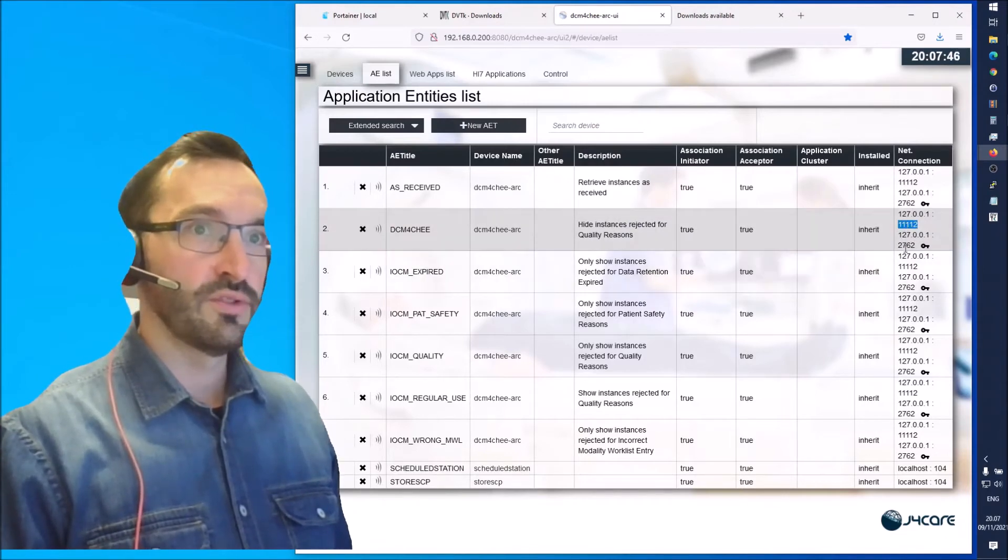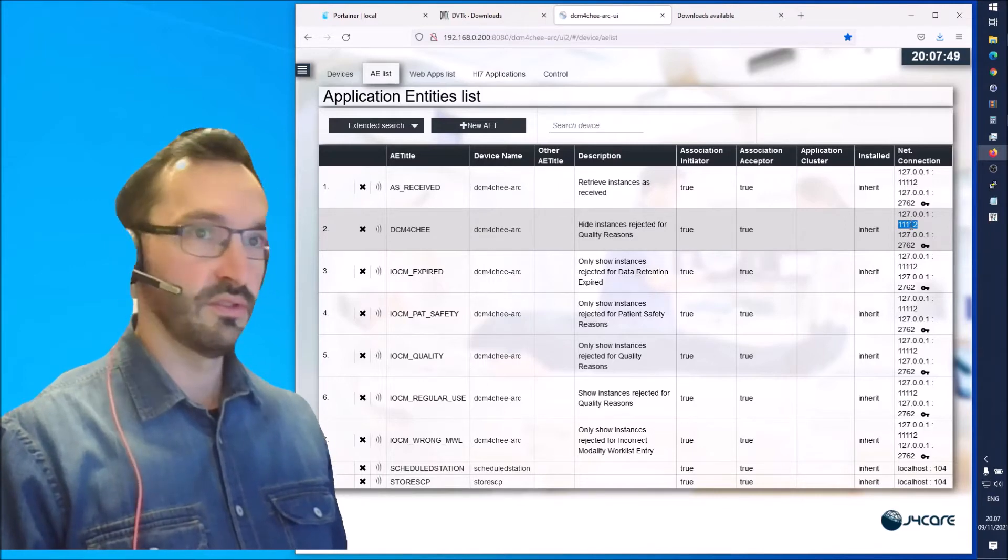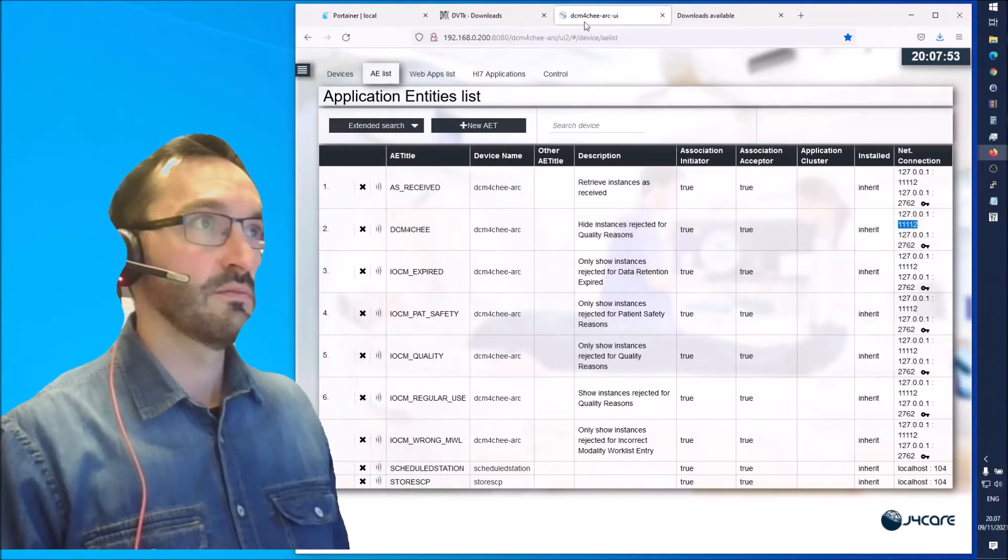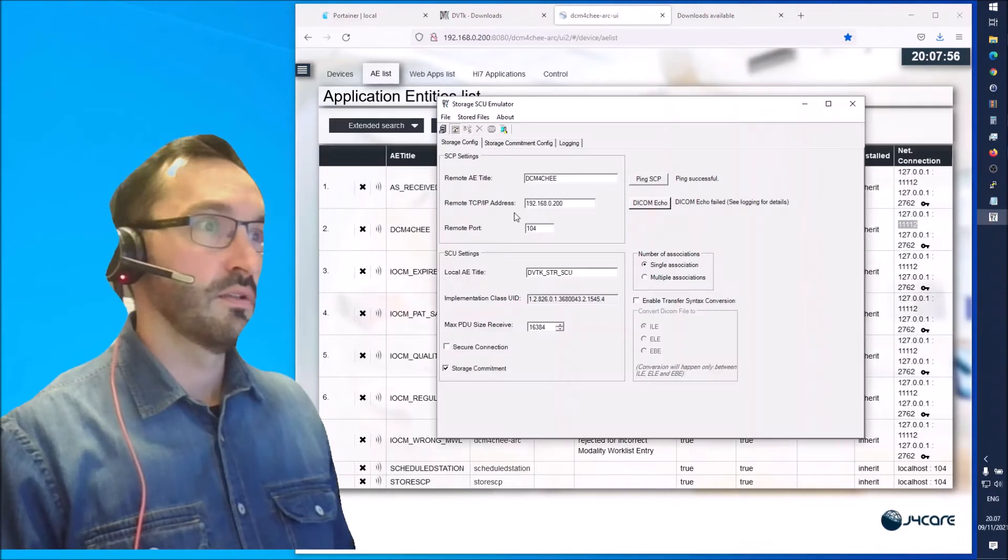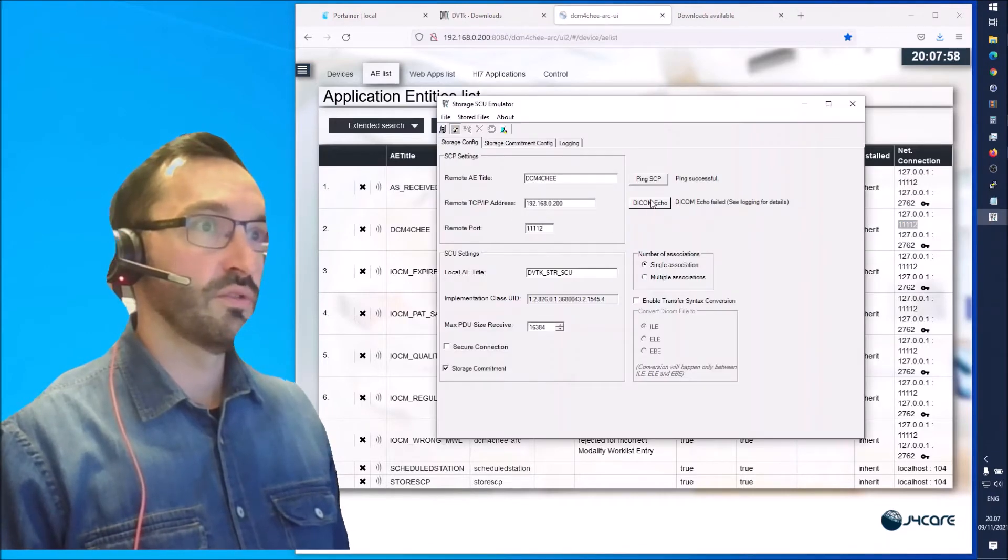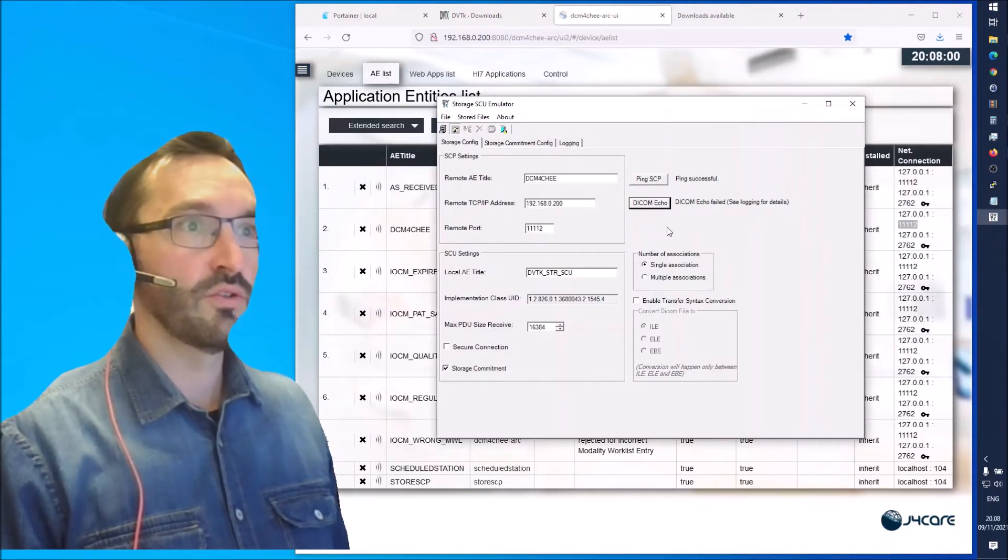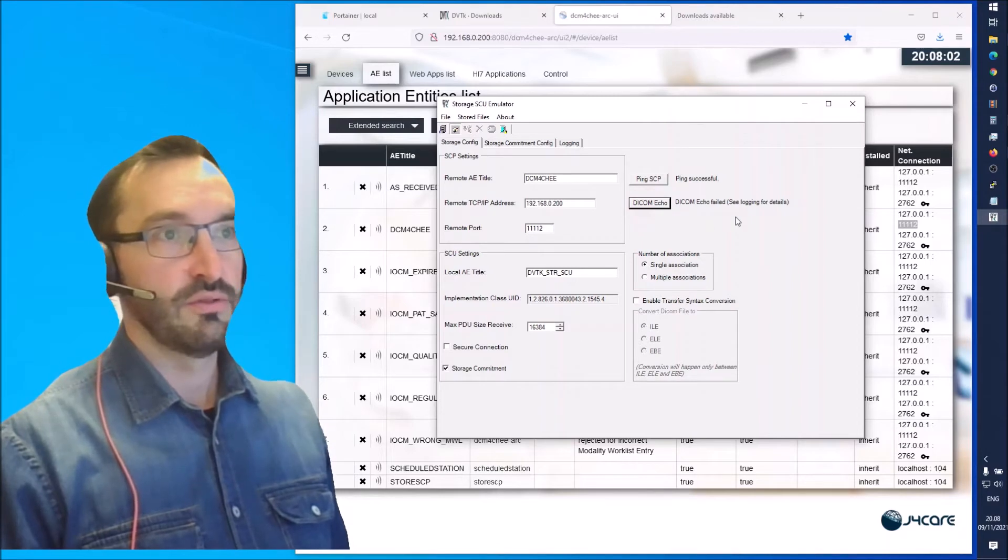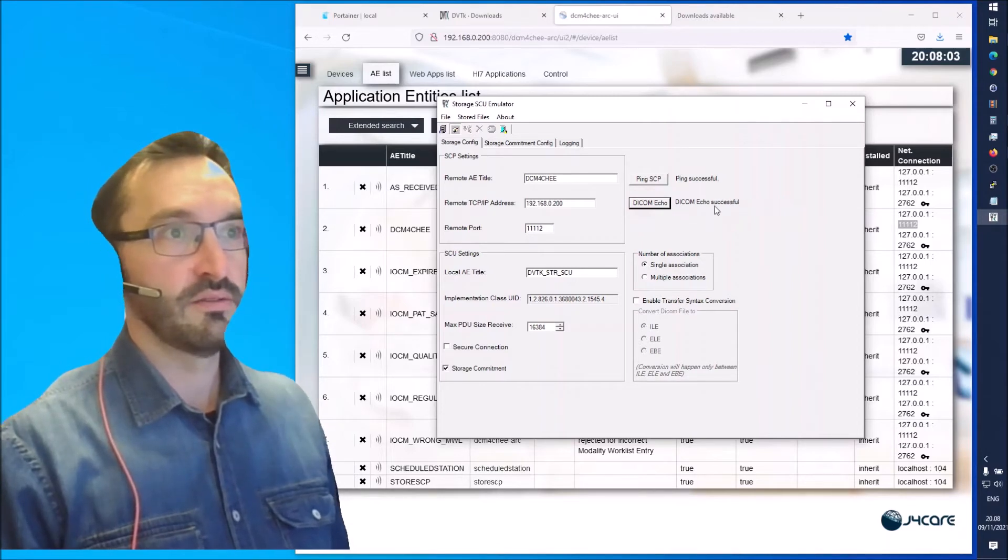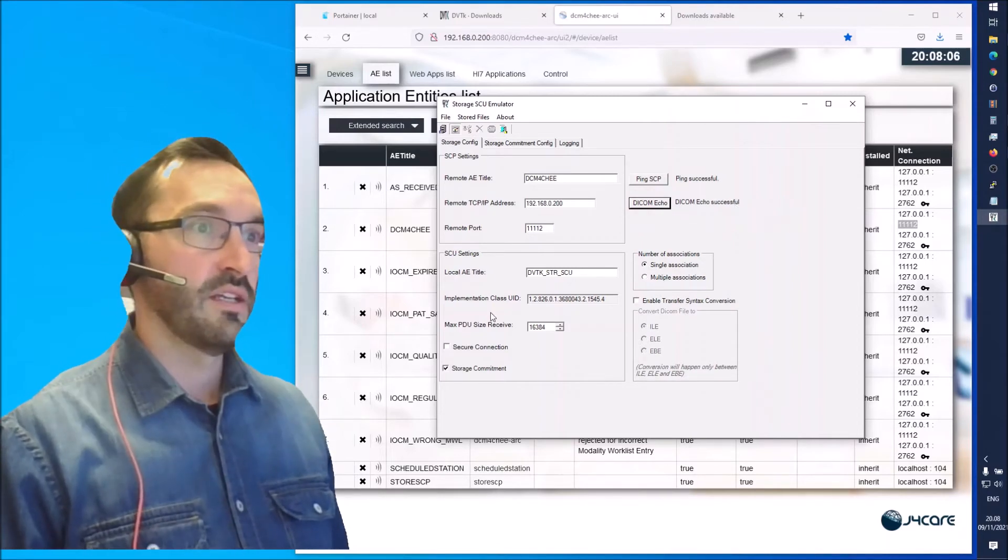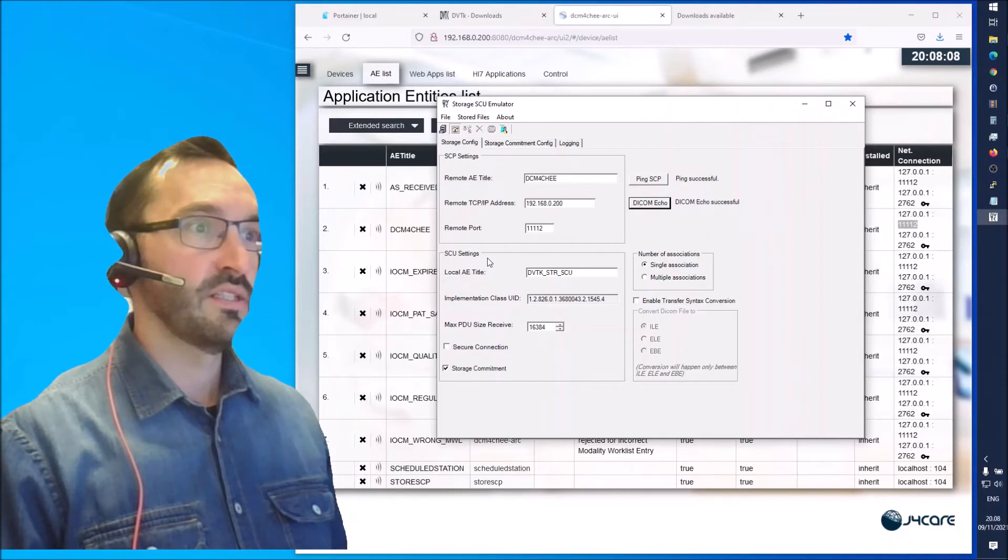There are two ports. The other one is for secured connections. We are using the one which doesn't need the certificate. I'll copy that in as the remote port and now we can again do a DICOM ping and it should succeed. DICOM ping successful.